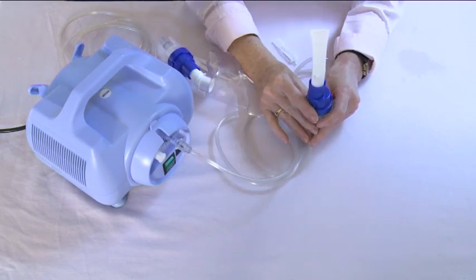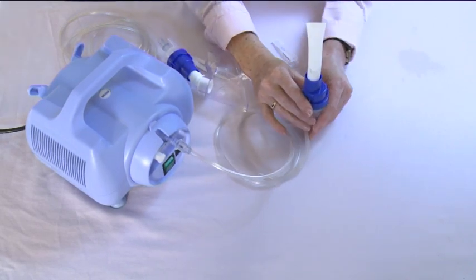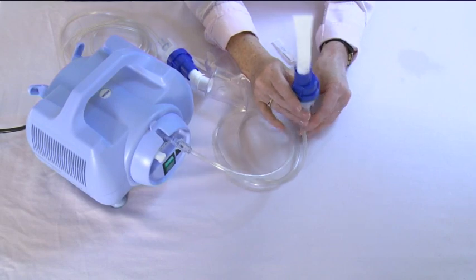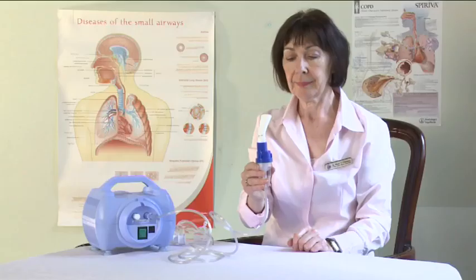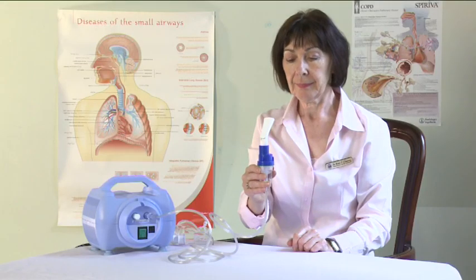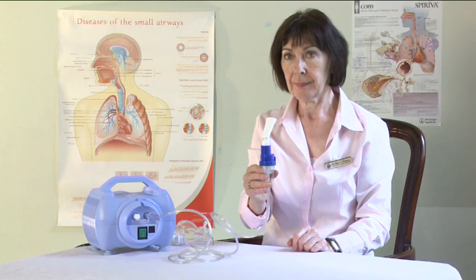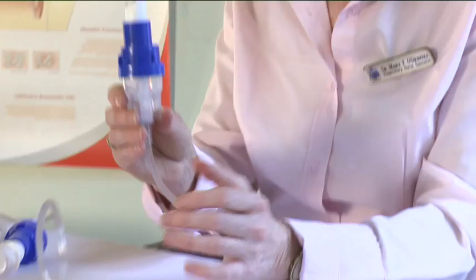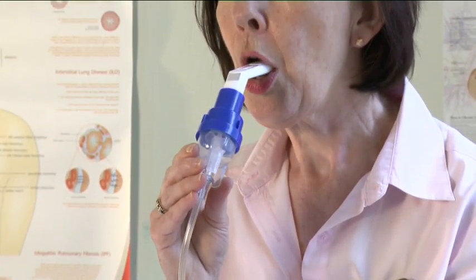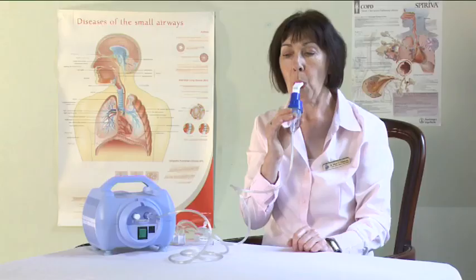To use the nebuliser correctly, hold it in the upright position. This will prevent spillage. When you use a nebuliser, sit in a comfortable upright position. Place the mouthpiece between your teeth and close your lips around it.